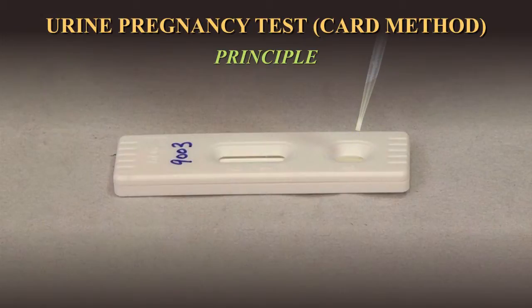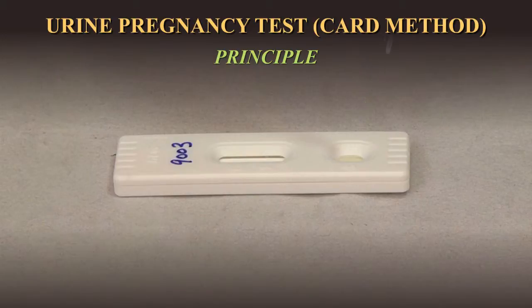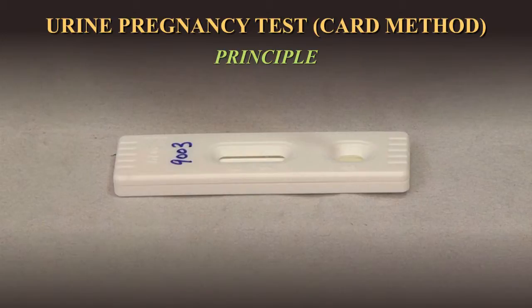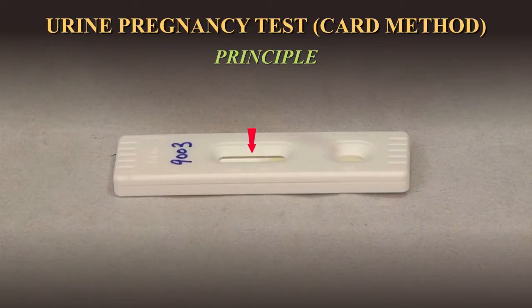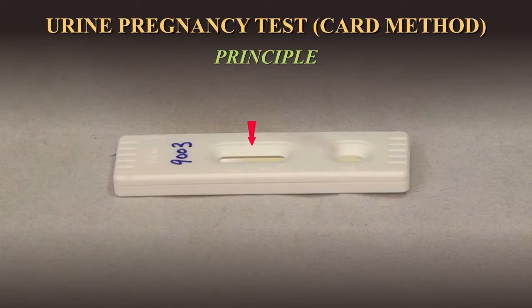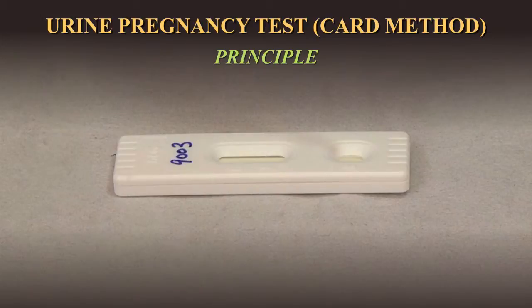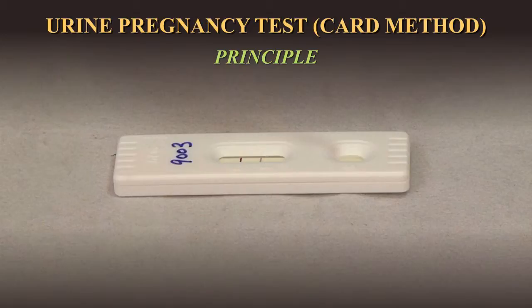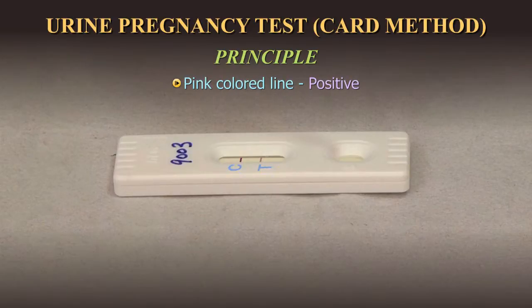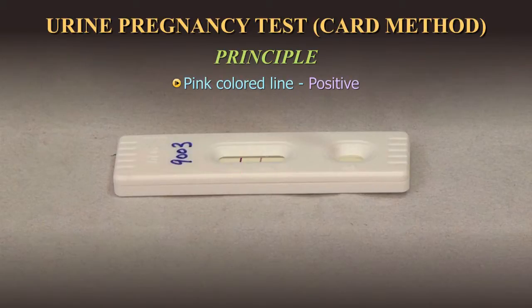As the test sample flows through the membrane assembly within the test device, the coloured conjugate binds with the HCG in the sample. This complex moves further on the membrane to the test region where it is immobilized by the anti-HCG antibodies coated on the membrane, leading to the formation of a pink-coloured line, which confirms a positive test result.